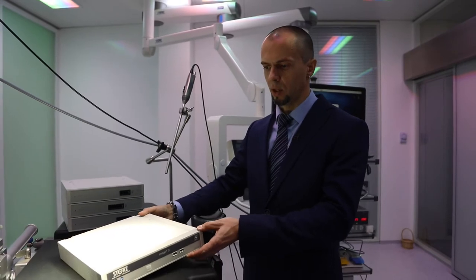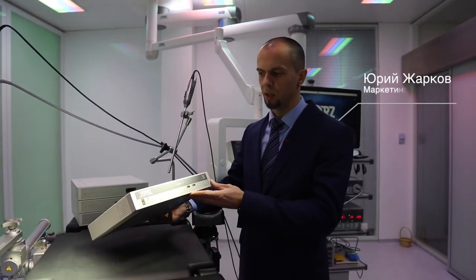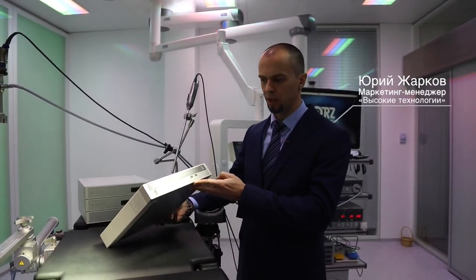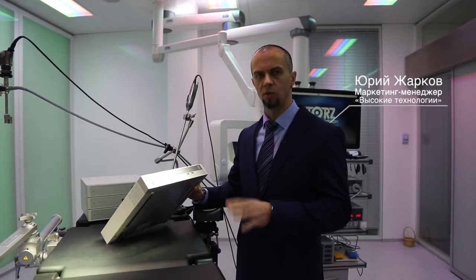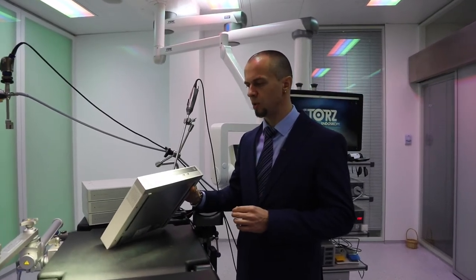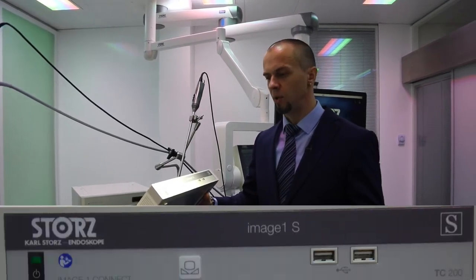Итак, из чего состоит современная видеоплатформа ImageOne S? Основной наш модуль, с которого мы всегда начинаем собирать нашу систему, называется ImageOne Connect, либо TC200RU.